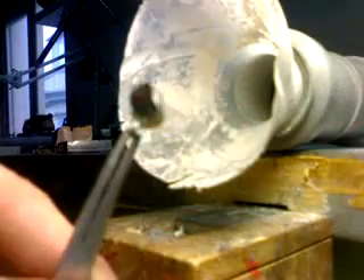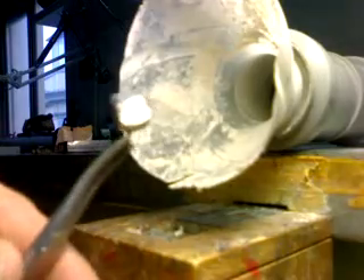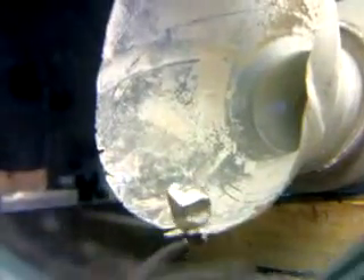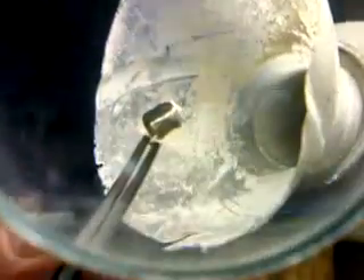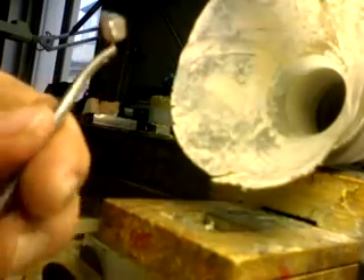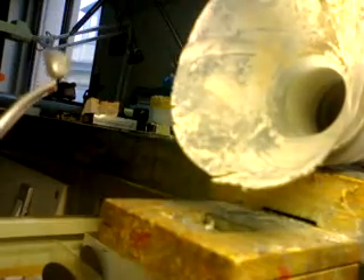In each area. Once the whole surface has been ground, I take the next burr, which is my carbide burr. And with my optical binoculars, I will be working on my margin.